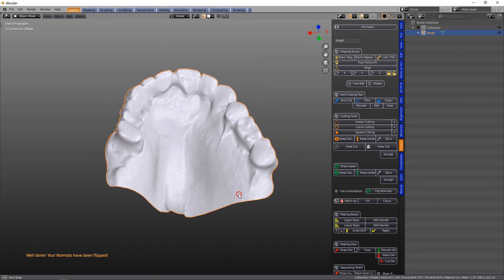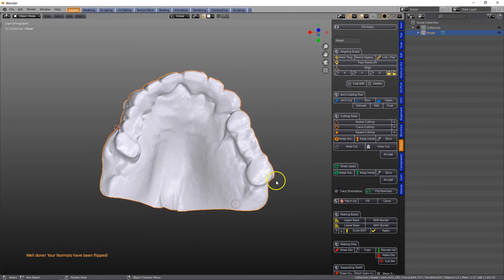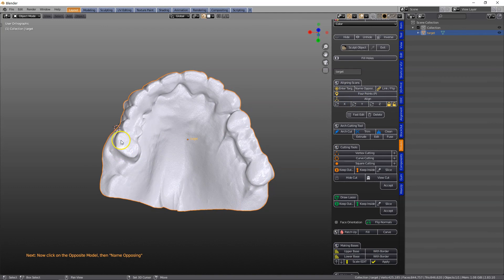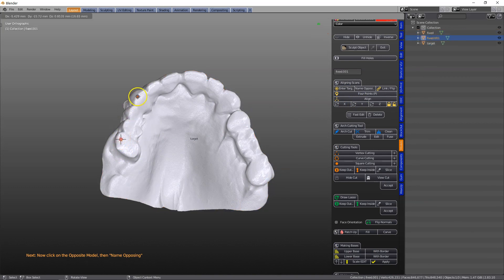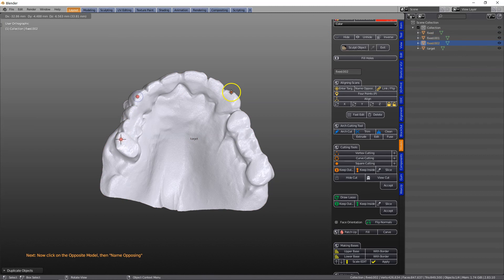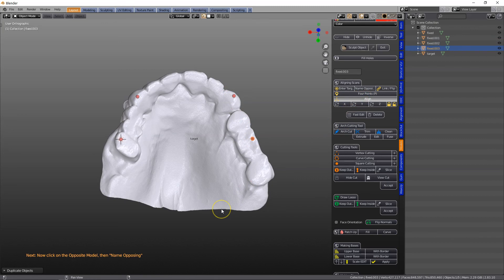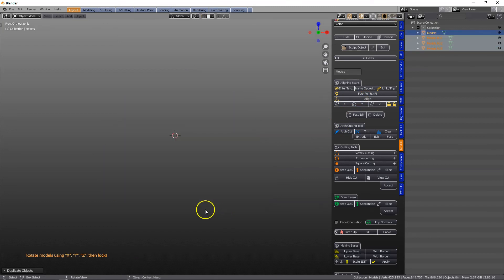Then what I'm going to do is I'm going to say this is the target, and I'm going to place a few points, P, then Shift D, like that, and align. Perfect.